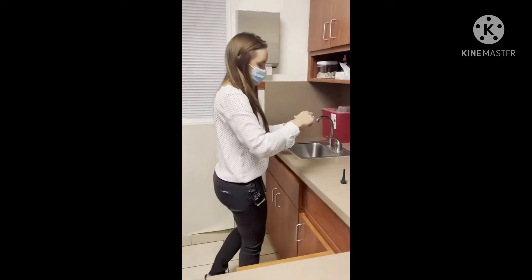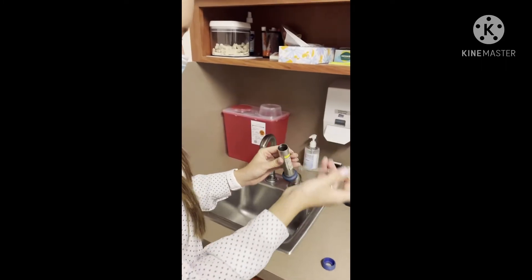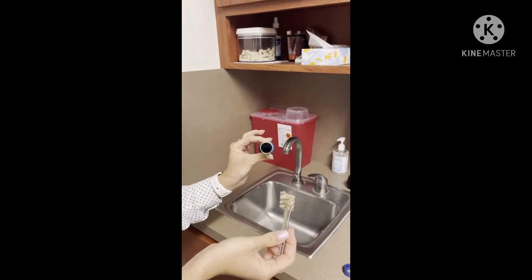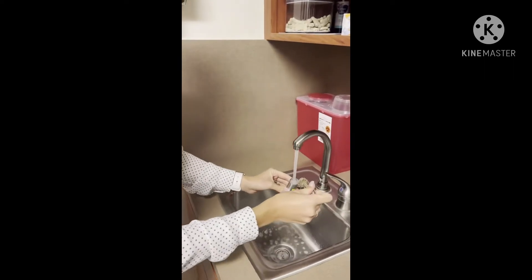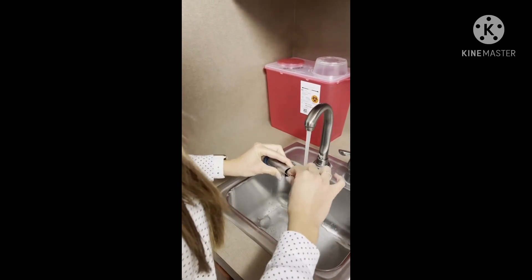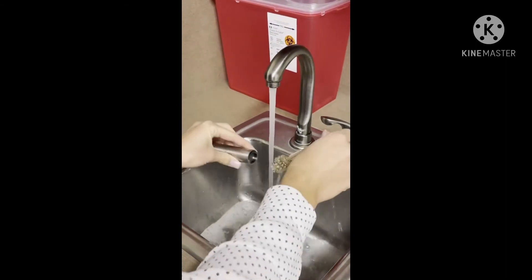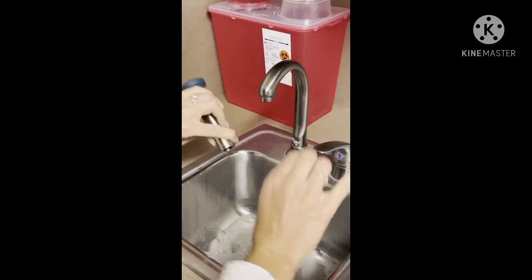How you clean these — this actually comes apart. You just take everything out. You use this brush to clean inside of that tube because sometimes it can get dirty. And you just use water — you do a little rinse in and scrub it as best you can.